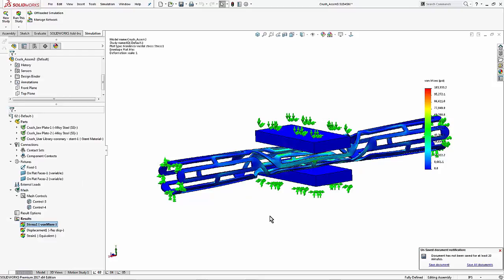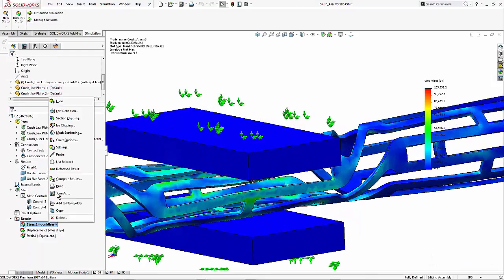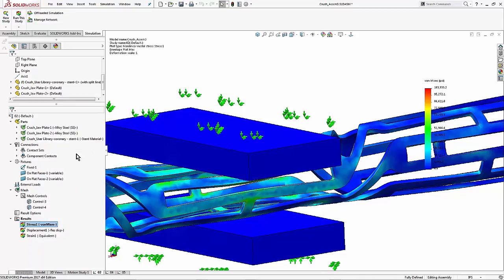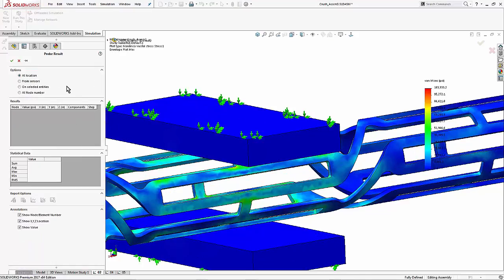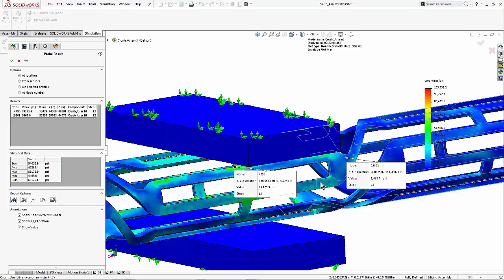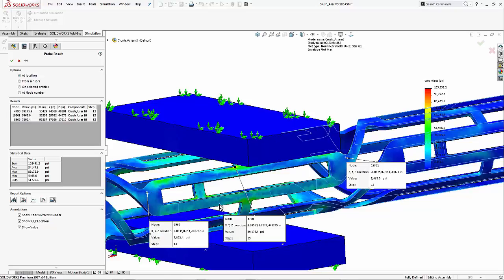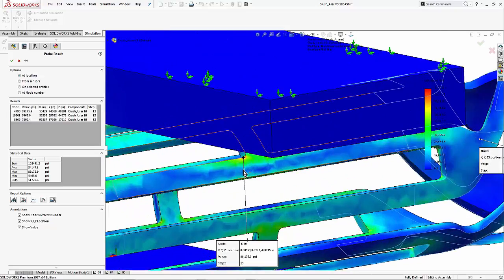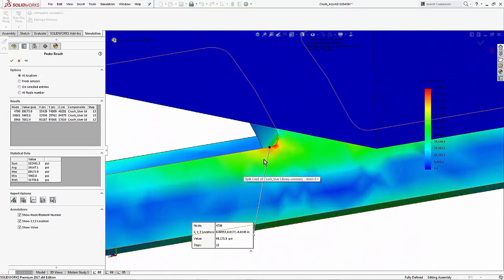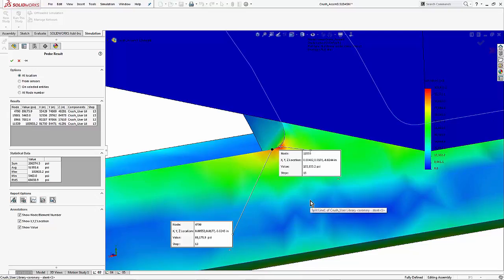Second, perhaps I want to output numerical results. So I would do that using the probe tool. I get to this by right clicking on any plot that I have active. Now there's a handful of options here. What I just need to do is click on some random points on the model. It's going to throw out some nodal stresses on those points. You can perhaps use that to find the max like this.